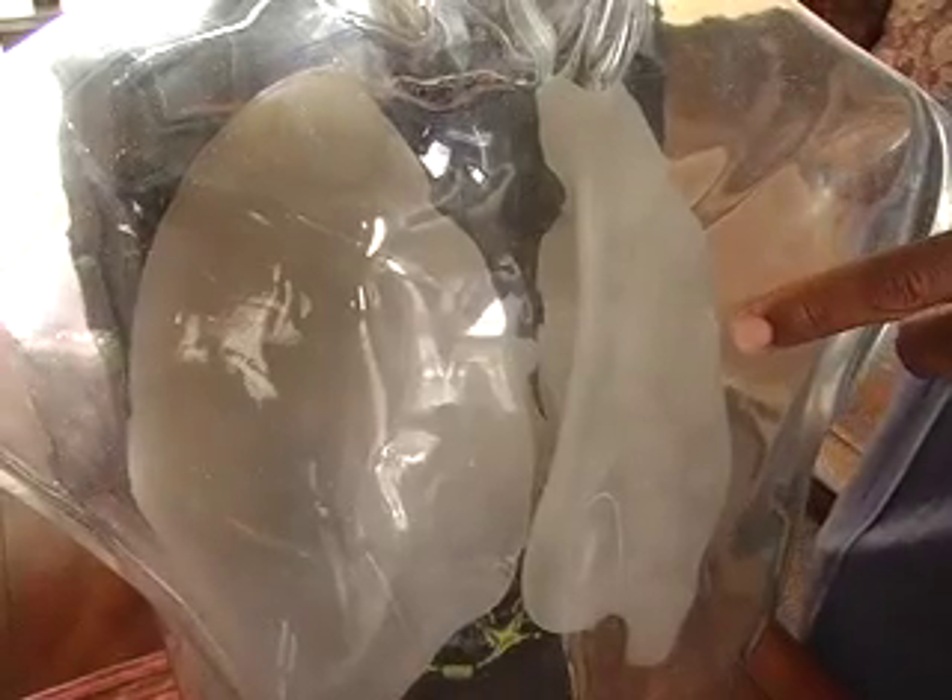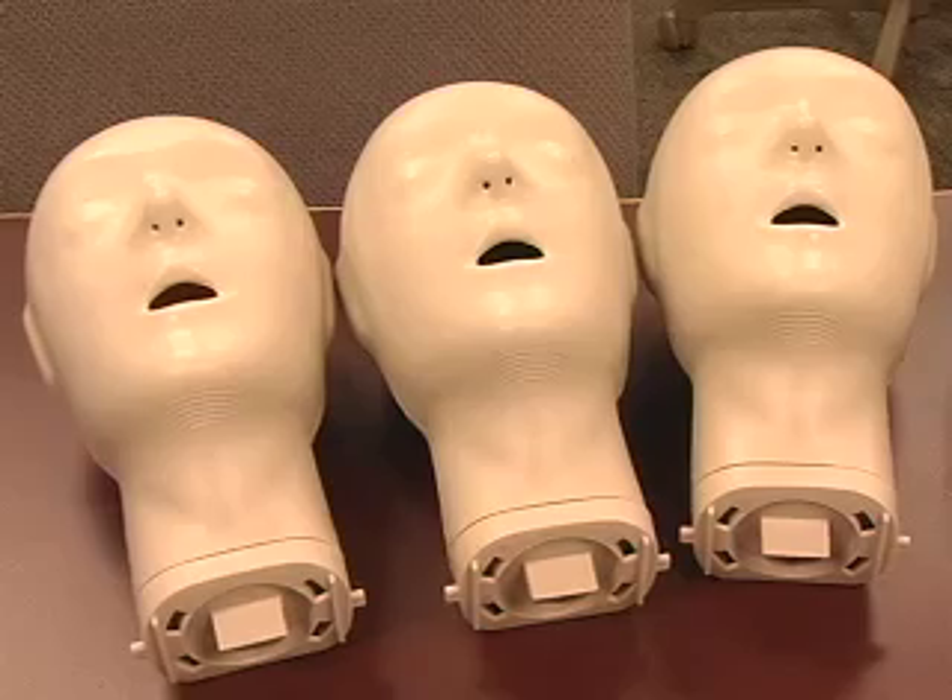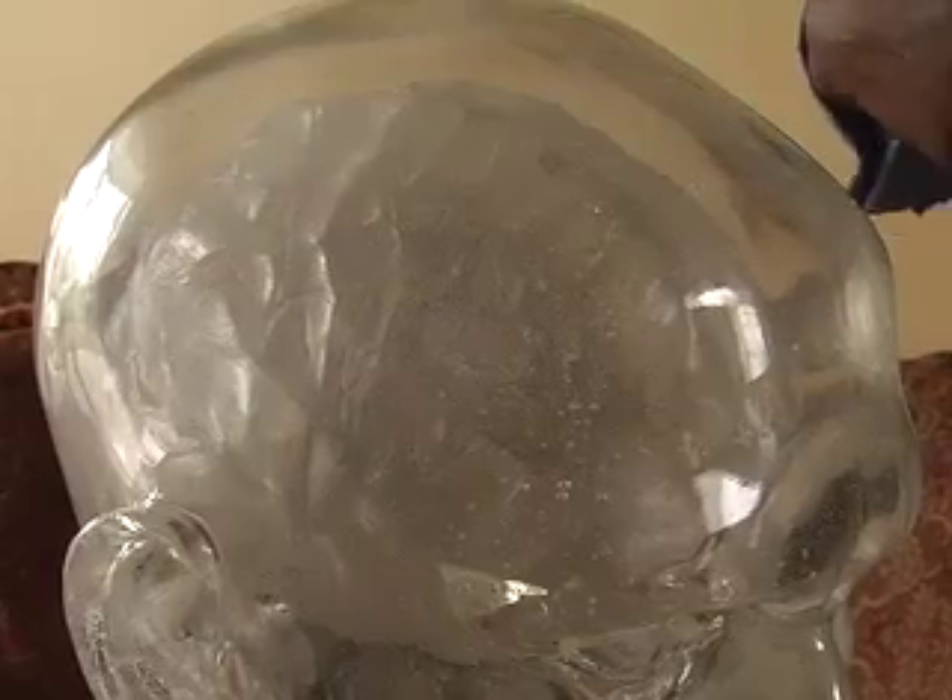Clash has made his prototype out of hard plastic to reflect a human sternum. He designed TransProto out of clear plastic so it can be more universal — it can go anywhere: China, Africa, Japan. It doesn't matter. There's no skin color.